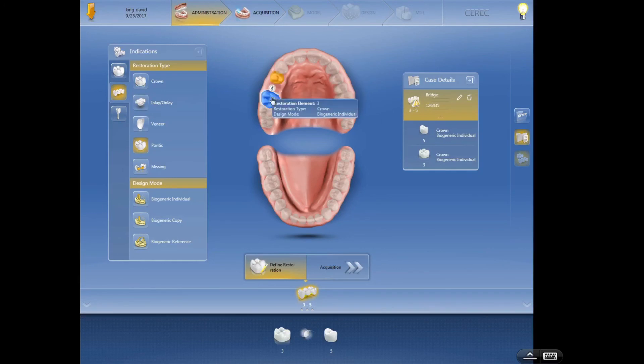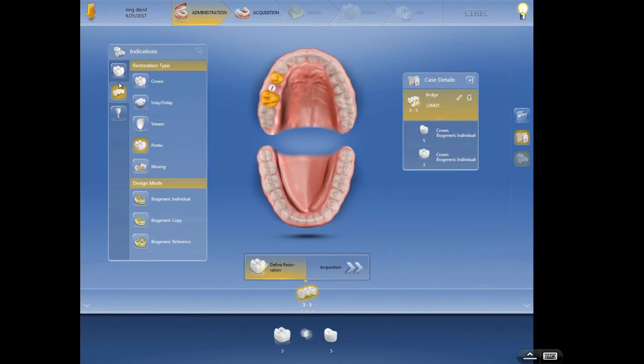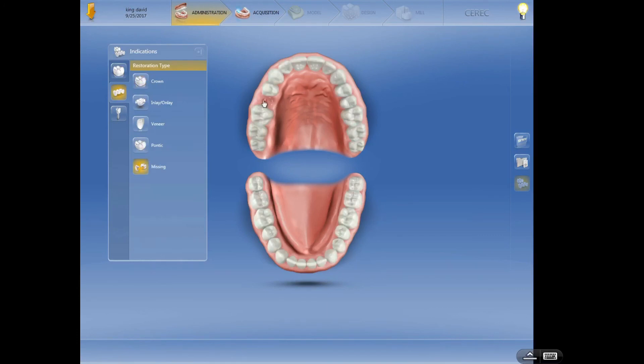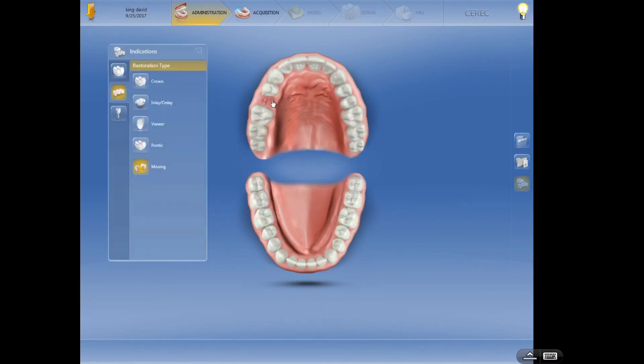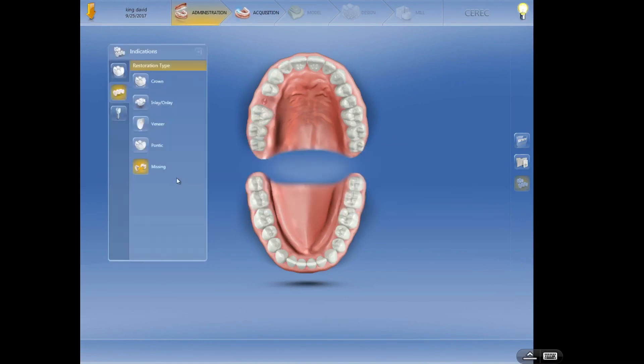So now we have these two teeth. The computer's going to design connected, which will be big problems for you. So don't use this missing when you're designing a bridge, it just throws everything off. Let's delete that, we'll go back to what we were at before. Bridge, we're going to do the abutments. I'm going to unselect this is missing. Yes I know, I'm going to delete that. Not missing, we're going to design that as a pontic.